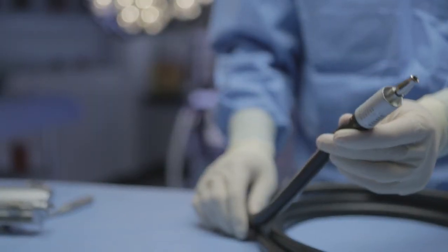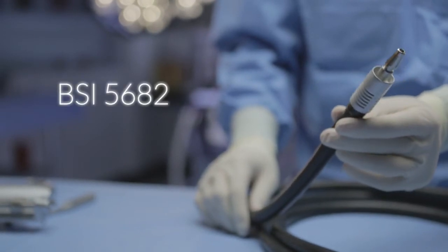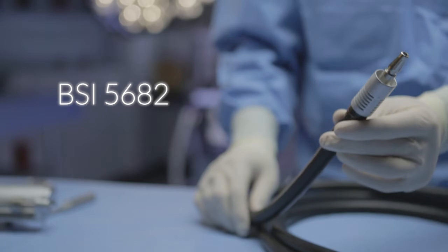Only use the supplied air hose or one having a probe in compliance with BSI-5682 for high pressure medical air.